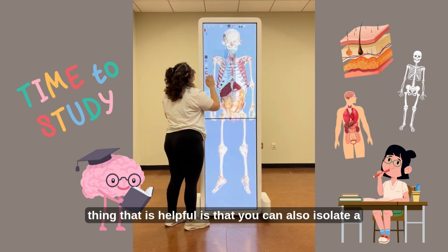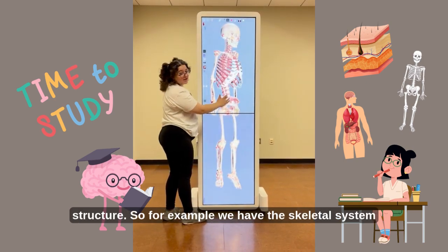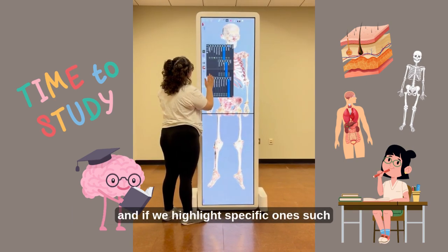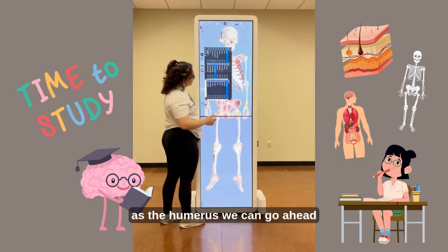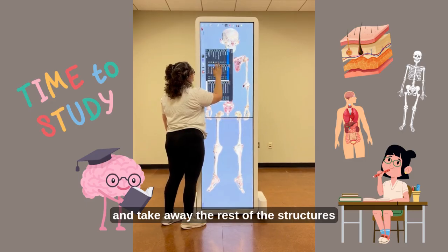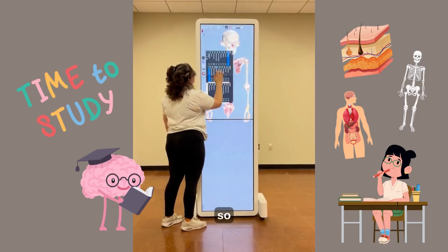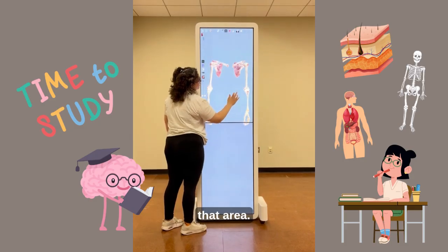Another thing that is helpful is that you can also isolate a structure. So for example, we have the skeletal system. And if we highlight specific ones, such as the humerus, we can go ahead and take away the rest of the structures so you can specifically isolate that area.